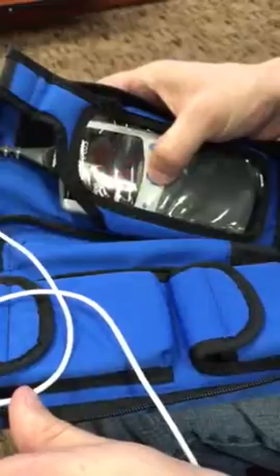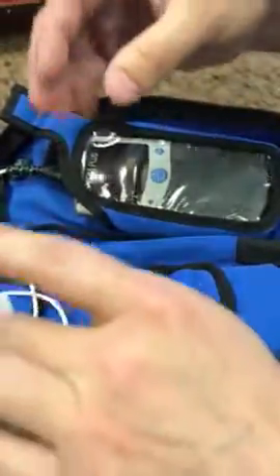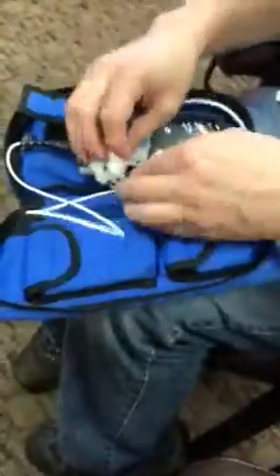When you're done in the morning, hold the button until it shuts off, then bring it back to us. We'll get it downloaded and get the results to the doctor.